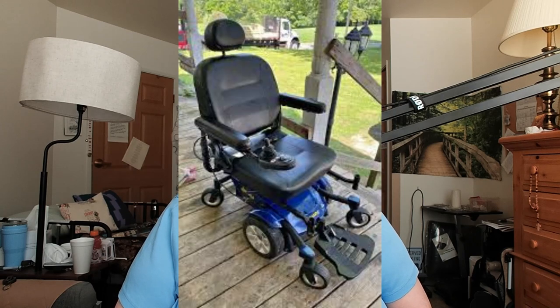It has seat belts, which I do use when I'm traveling in a bus, in the reno-van, or on the streets, in case I tip over. I've been stuck in the mud, which is always good - being strapped down so that the next person who comes by and tries to help pull you out of the mud, the seat belt helps you stay well strapped to the seat while you're doing that.